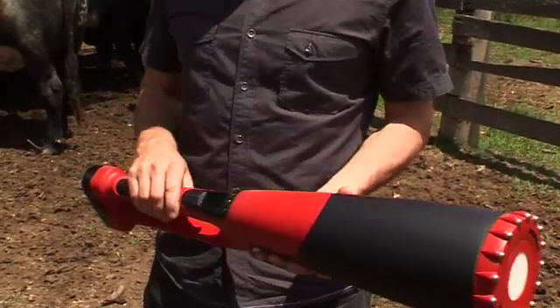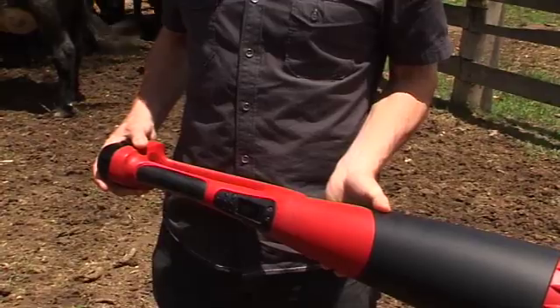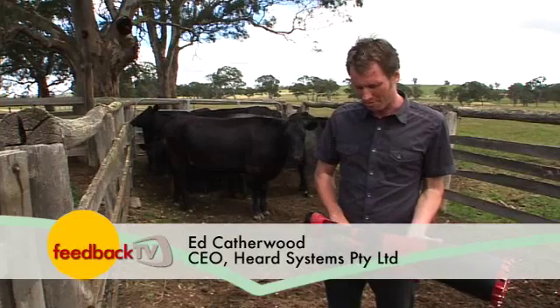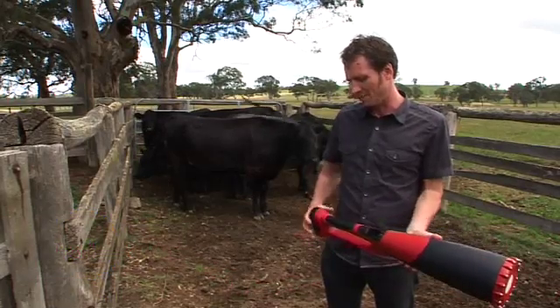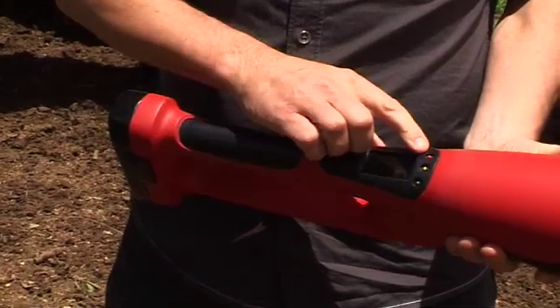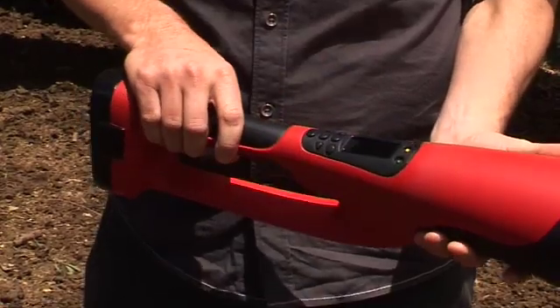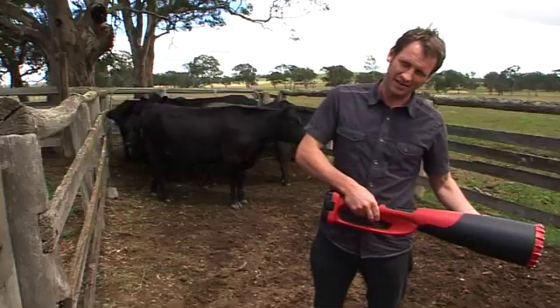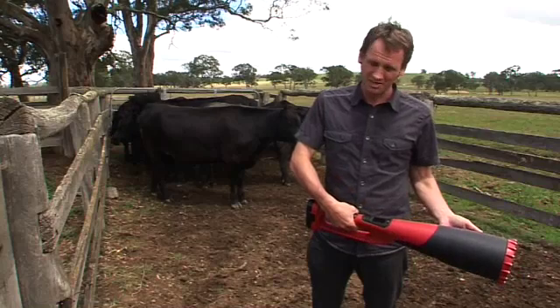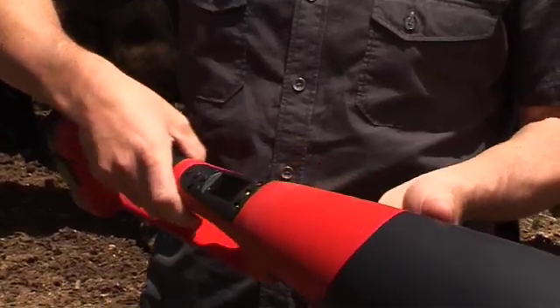The final product may look like this — this is a model of the prototype. The product is perhaps 600mm long. You can see it's reasonably robust to hold for a farmer, with a bit of protection. The battery slots in and out rather like a cordless drill. There are little lights here that flash or light up telling you what stage the device is up to. When you place it against the flank of a cow, you press this trigger — it's reading — and after fifteen or perhaps thirty seconds a little signal will come up. Click the button and there you have a pregnant cow or a non-pregnant cow.